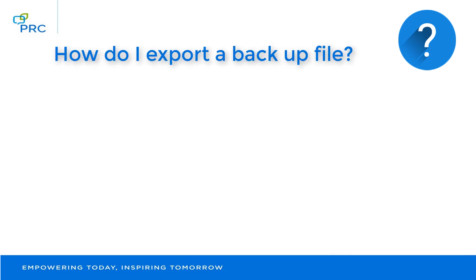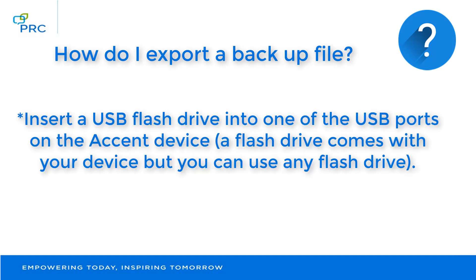Let's talk about exporting a backup file. First, you need to insert a USB flash drive into one of the USB ports on the Accent device. Note that a flash drive comes with your device, but you can use any flash drive to do this.